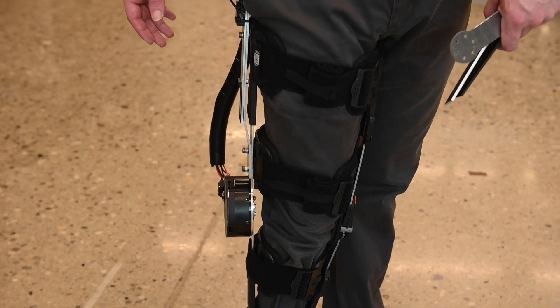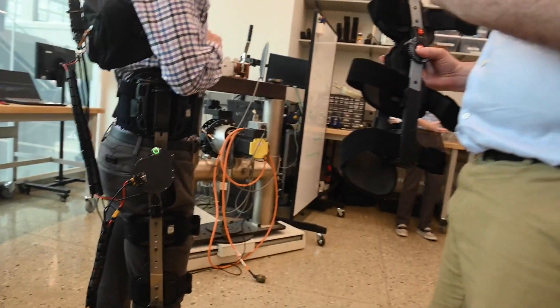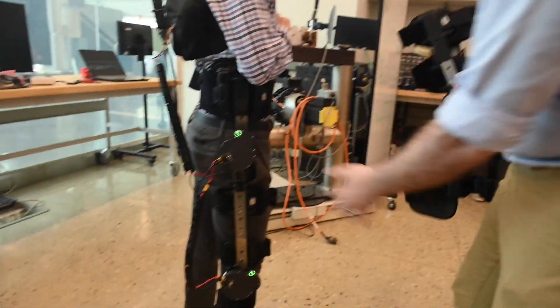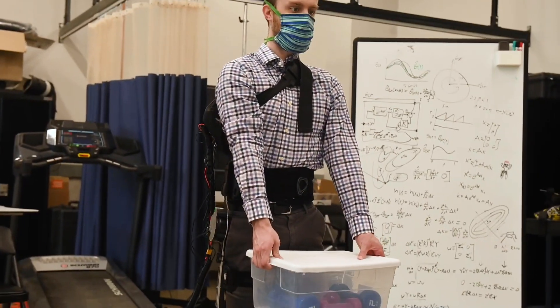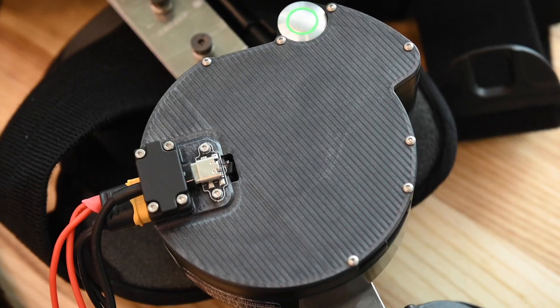We can enhance their strength, customized to their needs, so they just buy these kits. We have other ambitions in the future as well — thinking about things like stroke or multiple sclerosis and other ailments that affect mobility.